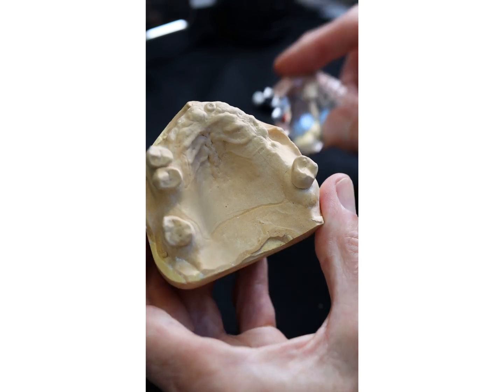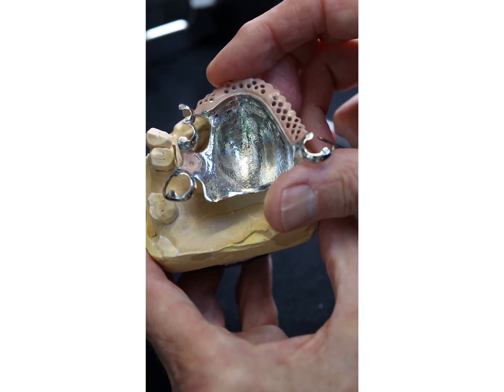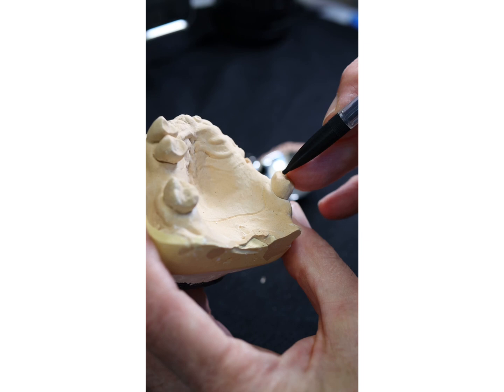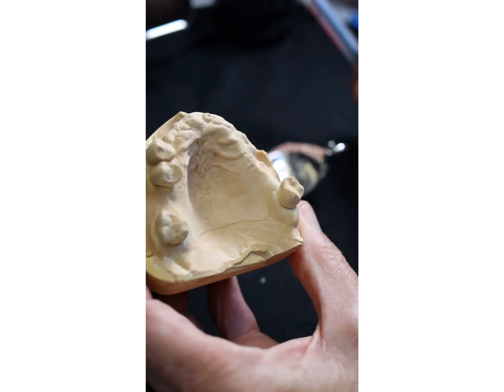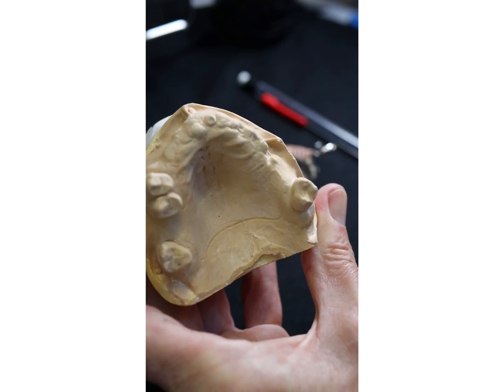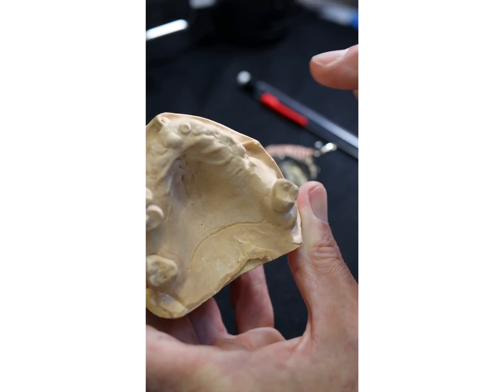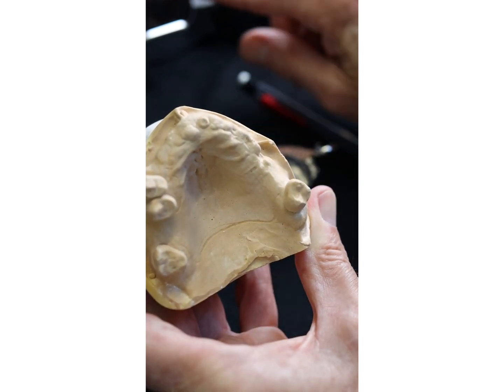And in addition, as you can see with this chrome, we have palatal surface contact on these three teeth and this tooth here. Everything is going to contribute and give frictional retention. So that's how denture bases can be retained without clasps. We're going to use clasps, but bear in mind we're going to use frictional denture base in intimate contact with the teeth for retention initially.